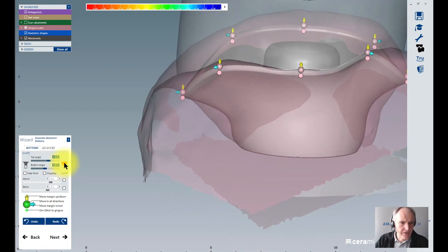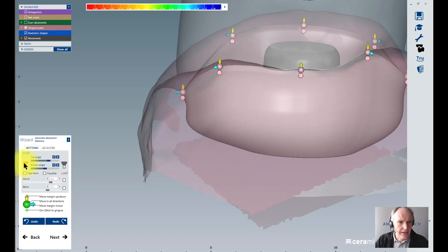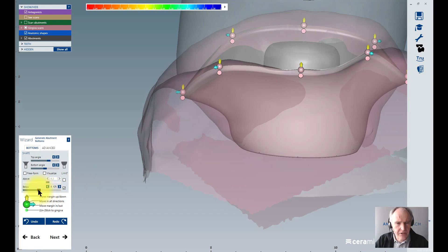Here we have two buttons to enlarge or to make it smaller - this is like an air pump when you pump air inside or let the air outside. But this is not so precise. If I click this box here, I can adjust my maximum penetration, my maximum intersection through the gingiva. Let's see how it looks like. But you see it's not quite correct, so therefore that's now the special trick.